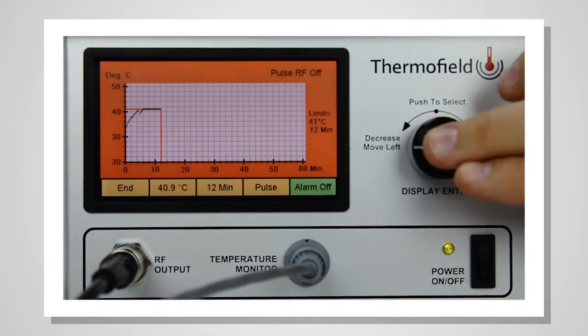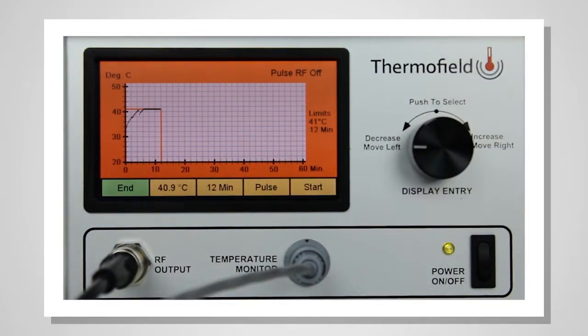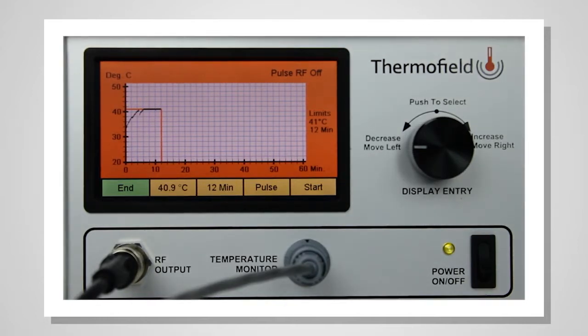When the treatment is finished, the alarm will sound. Push the knob to silence the alarm. To record the treatment information, take a picture of the display. When you're done, push the knob again to end and clear the display.